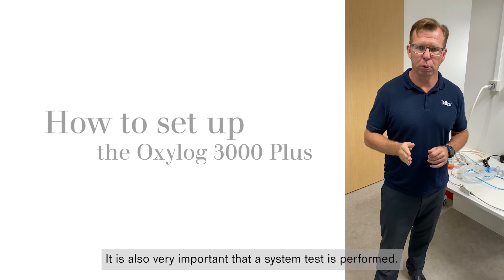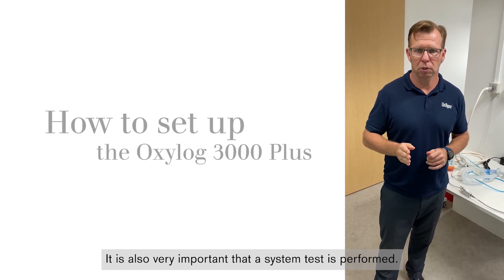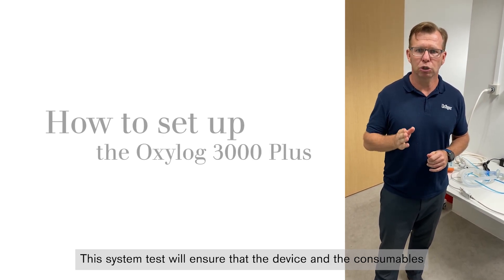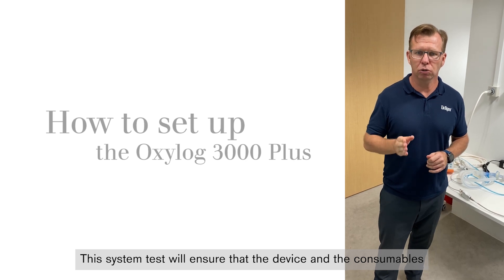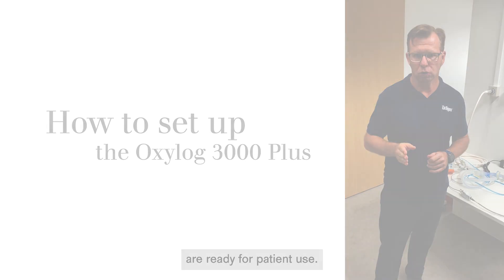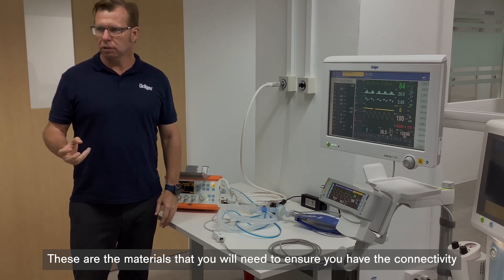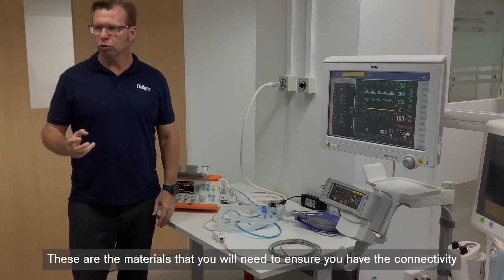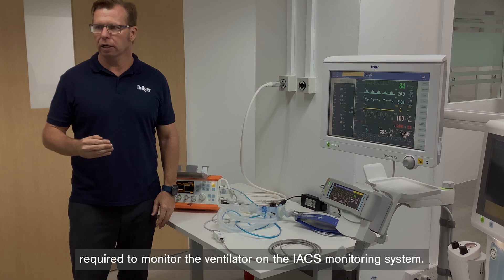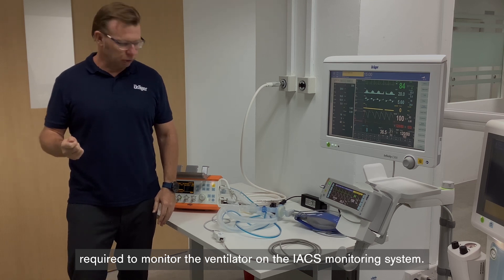It's also very important that a system test is performed. This system test will ensure that the device and the consumables are ready for patient use. These are the materials that you will need to ensure you have the connectivity required to monitor the ventilator on the IACS monitoring system.